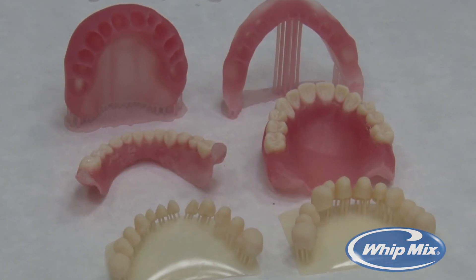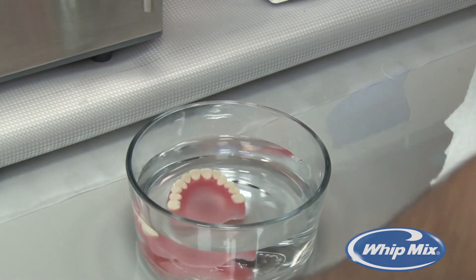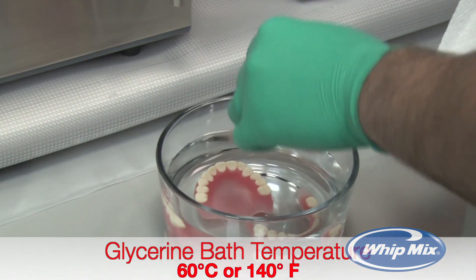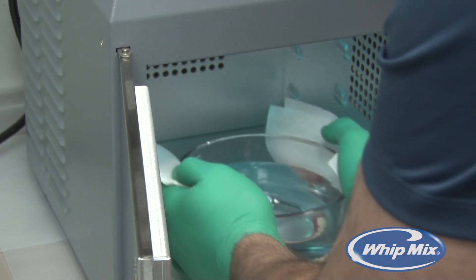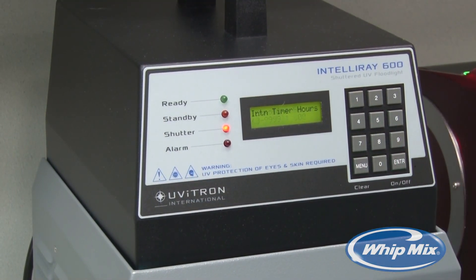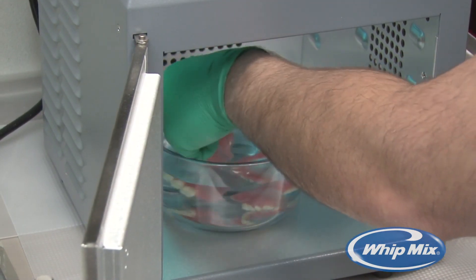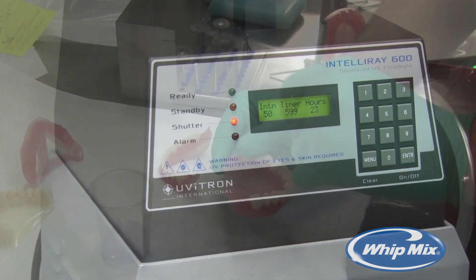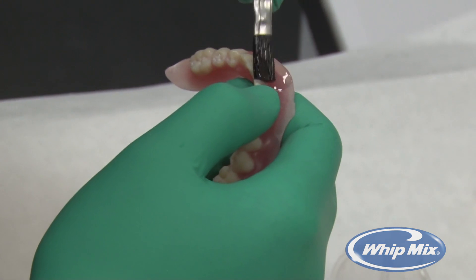When finished combining the teeth and denture base, place into a glycerine bath. The glycerine must be at a temperature of 60 degrees Celsius — 140 degrees Fahrenheit. Place the glycerine bath into the curing unit and cure for 10 minutes or 600 seconds. Open the curing unit and carefully flip the dentures inside the bath, then run the curing unit for another 10 minutes. When the second curing stage is complete, the denture is ready for polish and delivery.